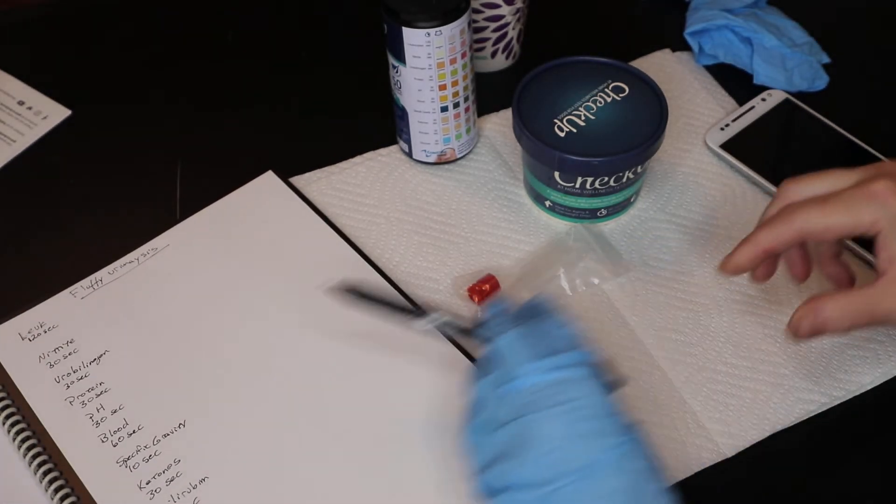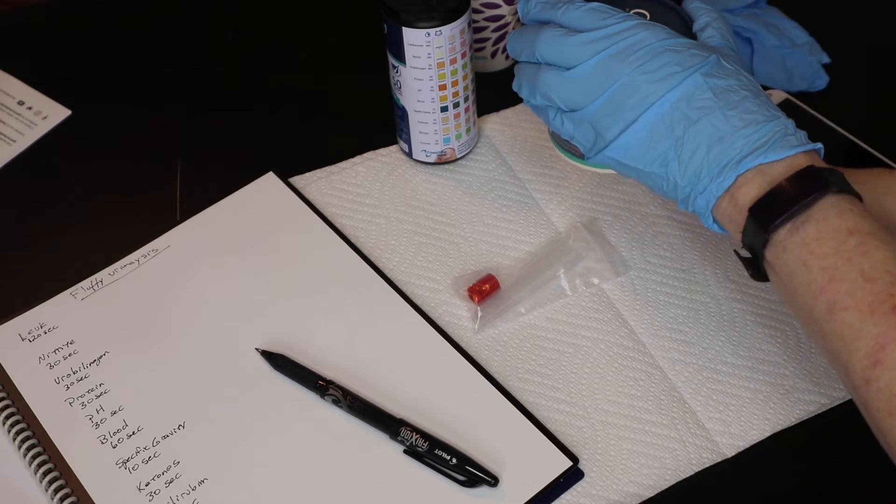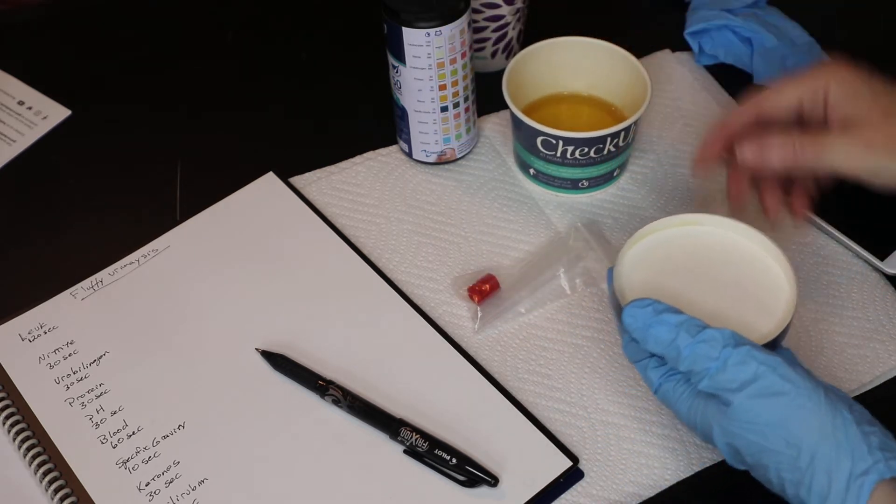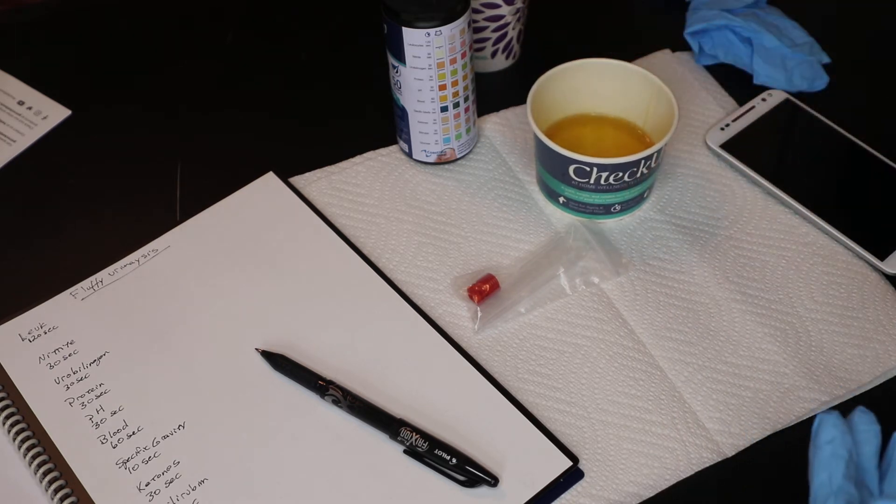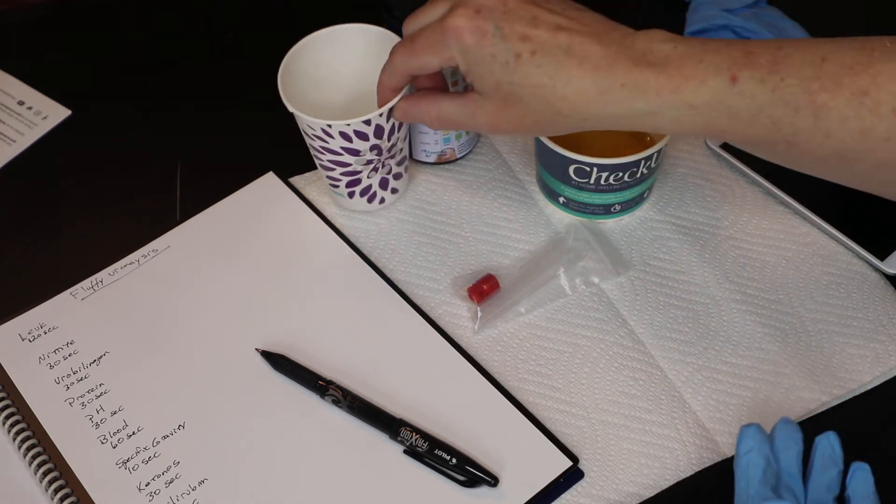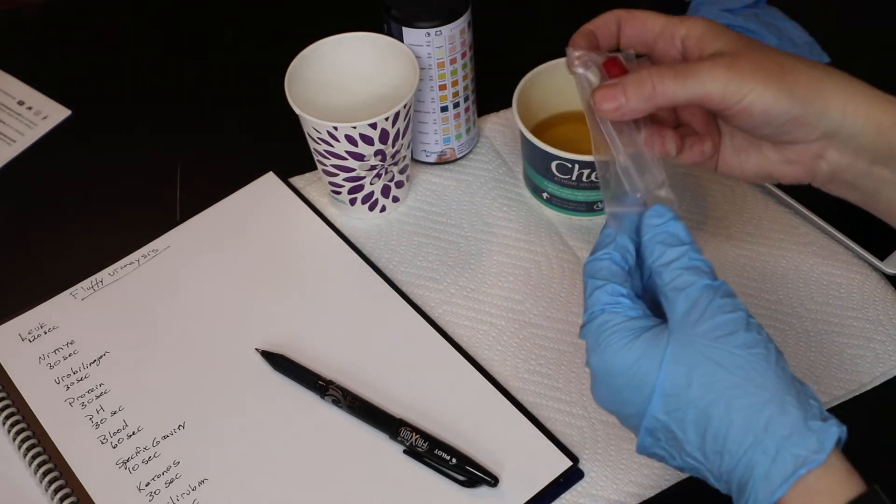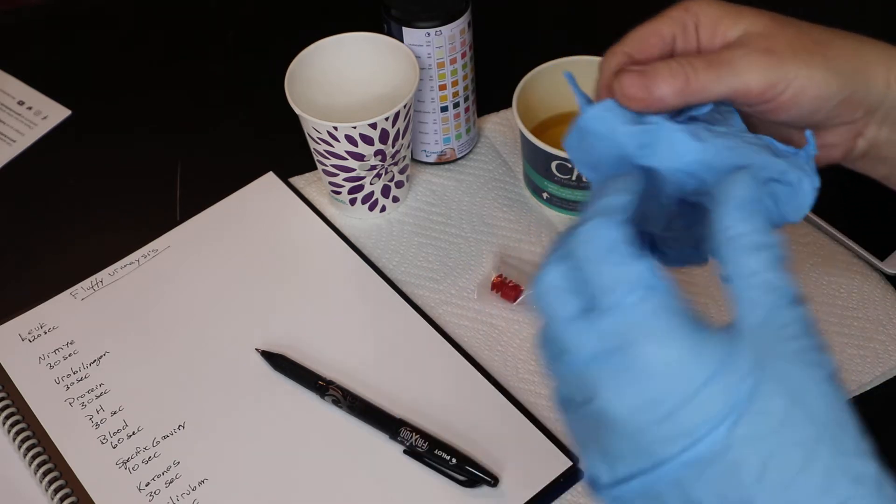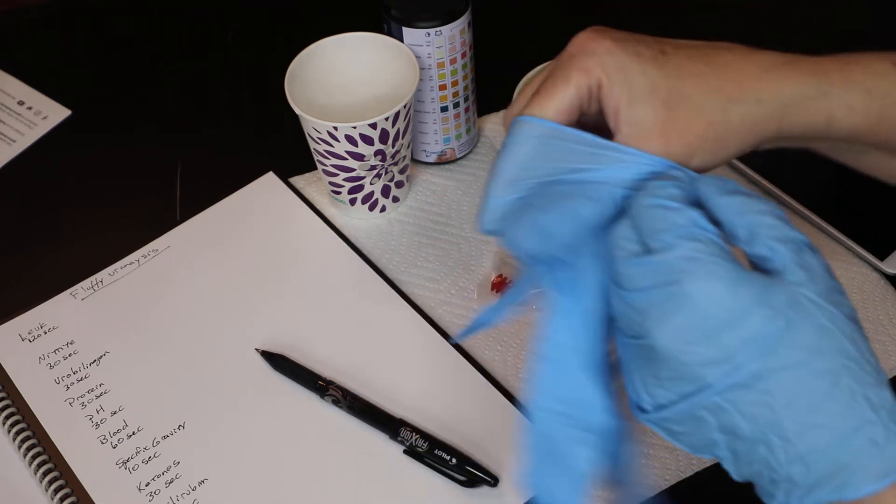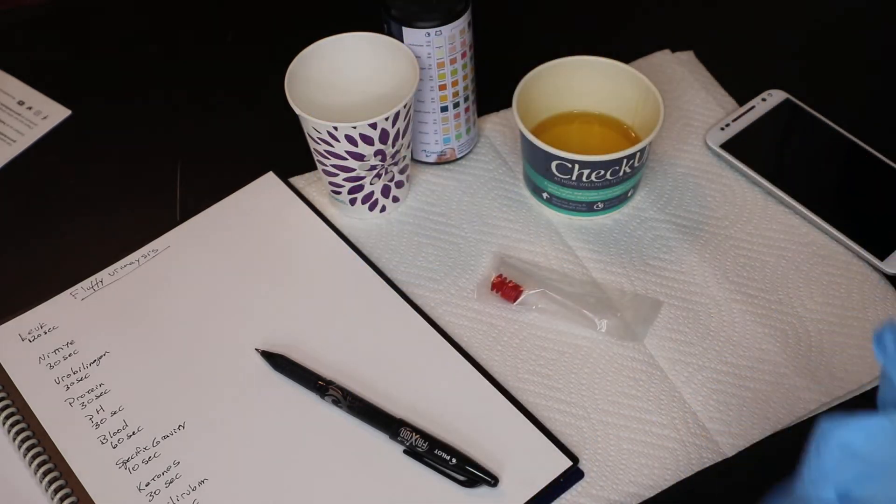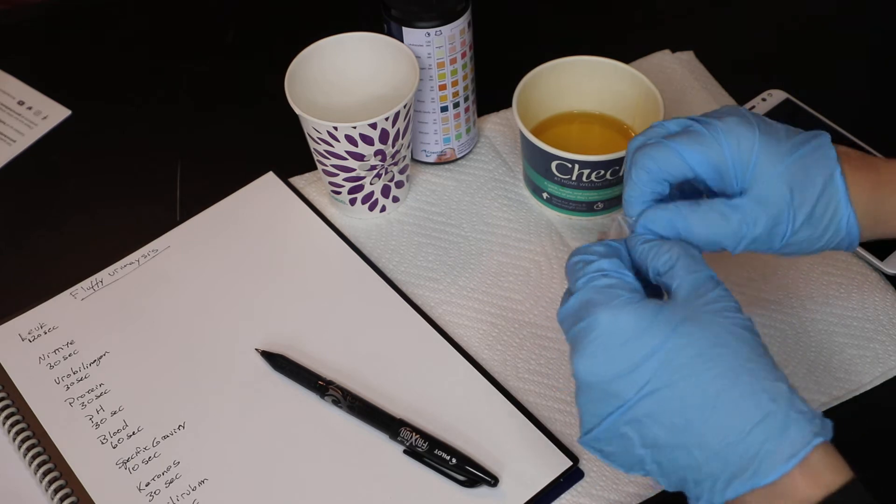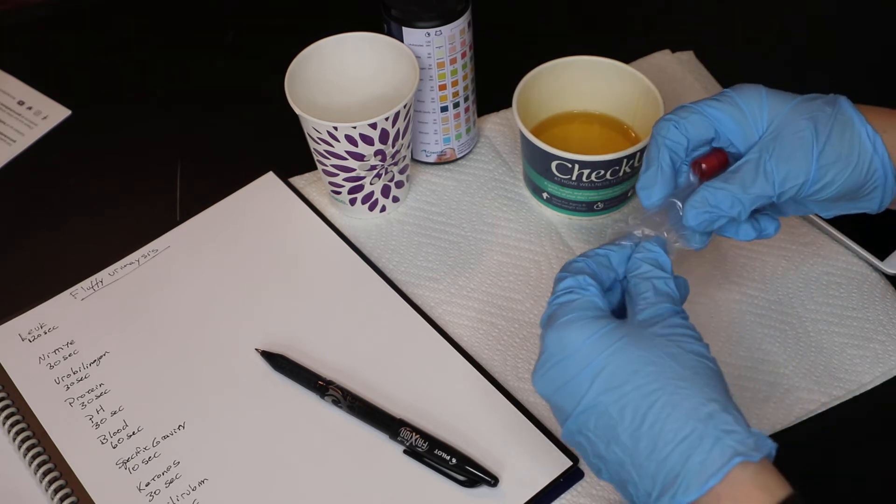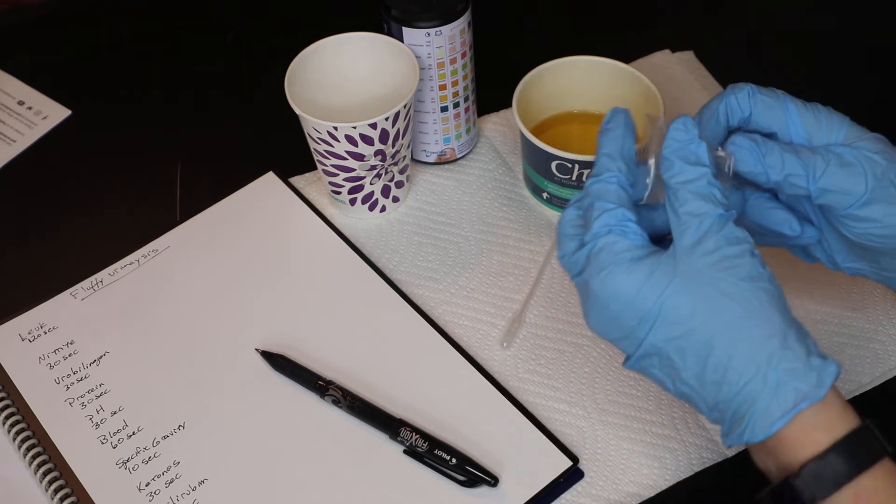Okay, so I got my stuff there. You want to have your urine. If it's dog urine or cat urine, you want that to be at room temperature or if you just collected it from your kitty, then you use the pipette that's provided in the kit. Let me put on my other glove. It's a good idea to wear gloves when doing this, just because urine can spill. And have a paper towel down on your workspace.